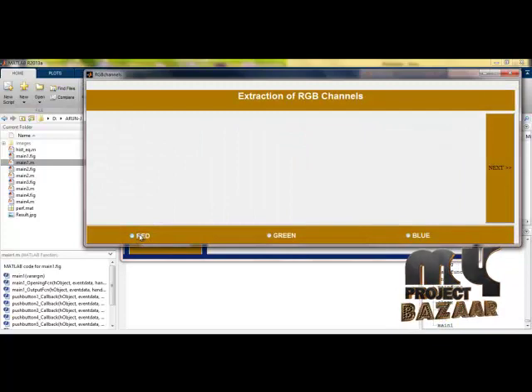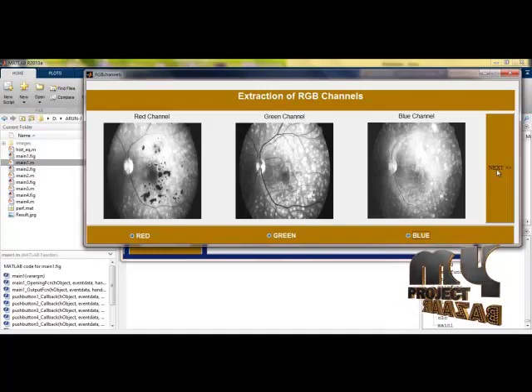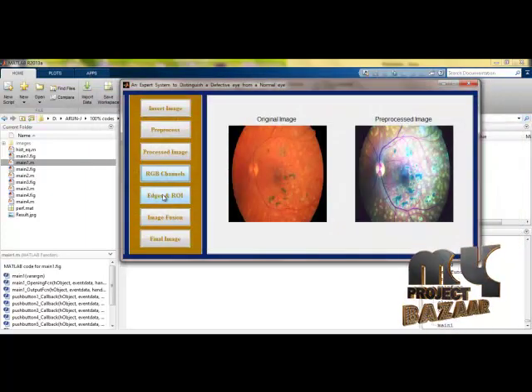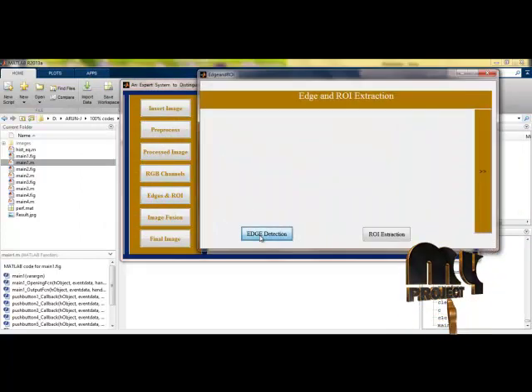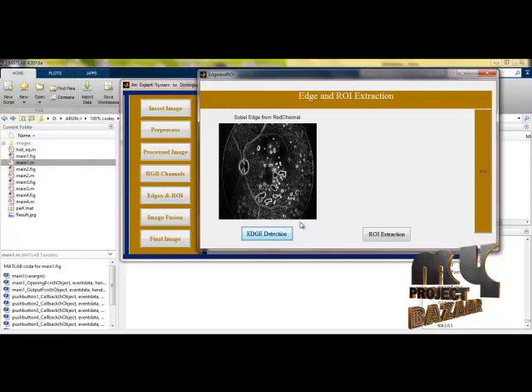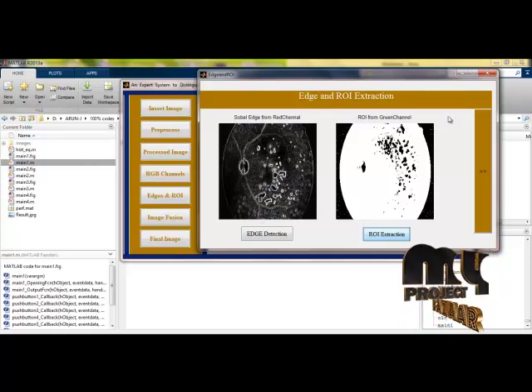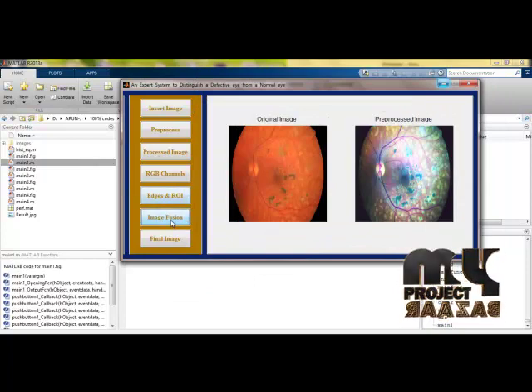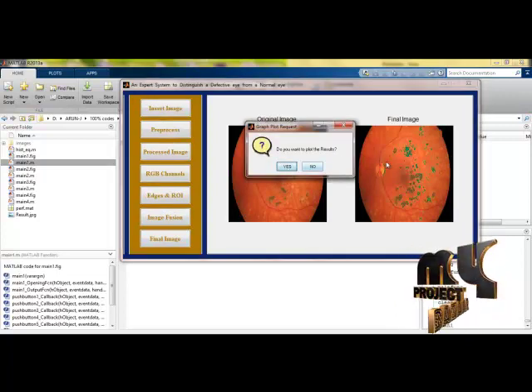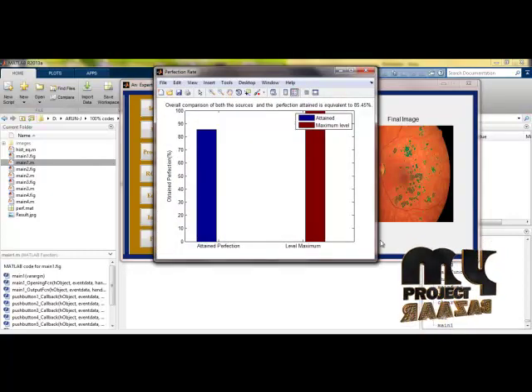Next, I am processing the red, green, and blue channels by splitting three channels from the RGB image. This shows the corresponding red, green, and blue channels. Going back to the main frame, I click yes to proceed. For edge and ROI processing: edges are extracted from the red channel because it gives better visual impression, and ROI is extracted from the green channel. The image is then fused, and the final image is masked with the original image. Here is the original image. If you want to see the performance results, click yes — the results will be shown here. Thank you.